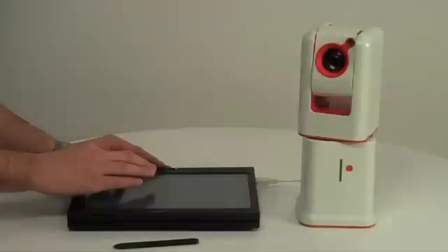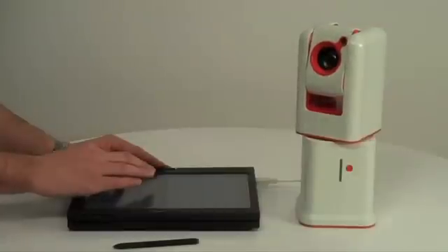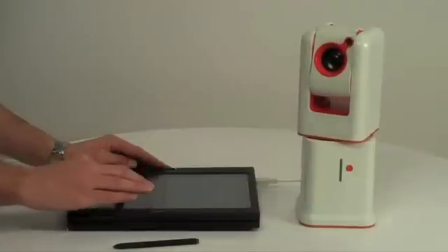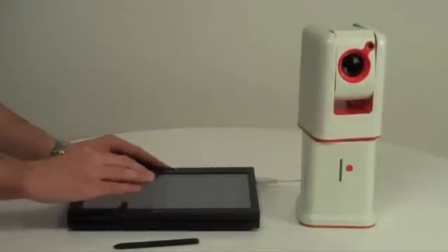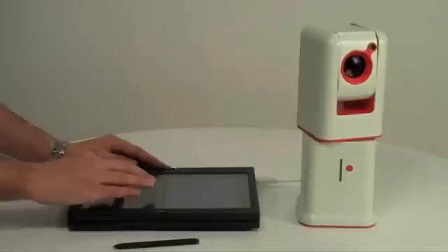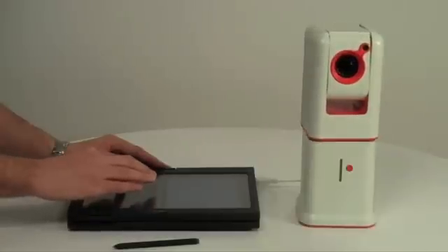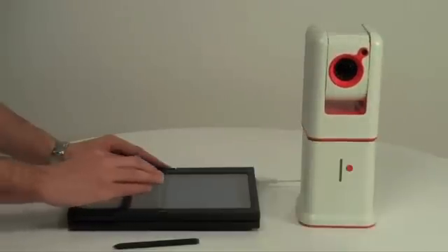So this is a camera that provides a live view of the board, but once you have that view you're going to need to zoom in. Once you zoom in you're going to need to be able to move the camera about, panning it left and right and tilting it up and down.